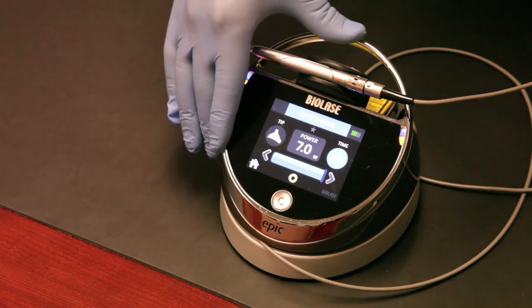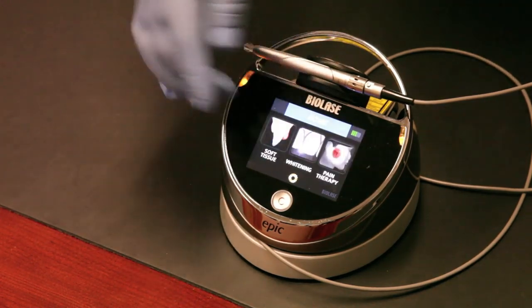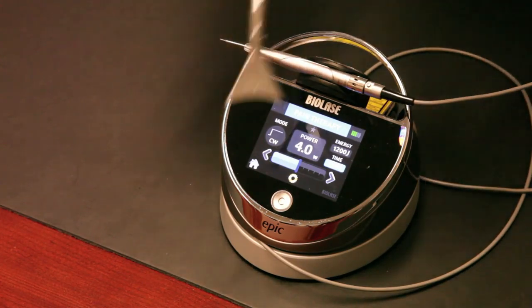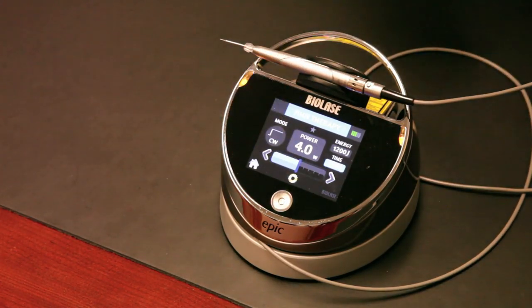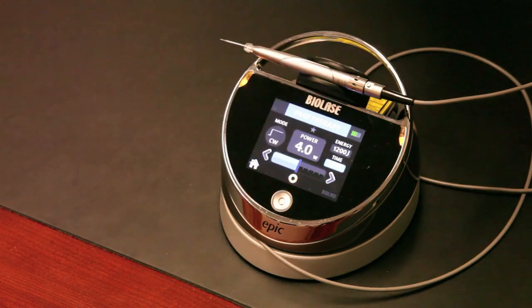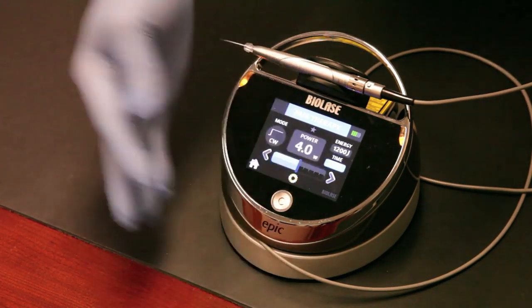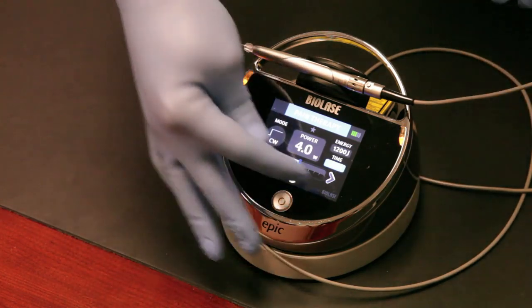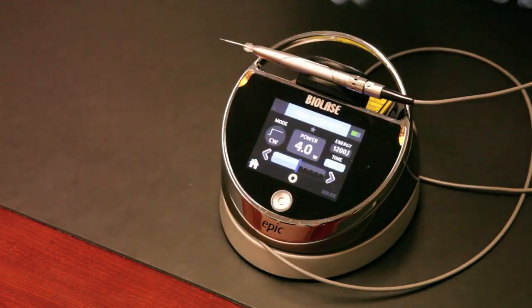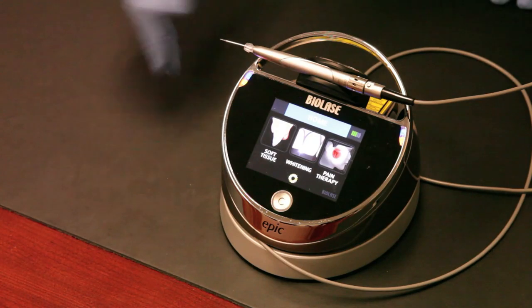Laser bleaching is a great way to add incremental revenue to your practice. The third center is pain therapy — you can use the whitening handpiece or the specially designed deep tissue handpiece. Powers are preset, the amount of joules delivered to the tissue is preset, and the duty cycle is preset. Really basic and easy to use for pain therapy, whitening, and soft tissue surgery.